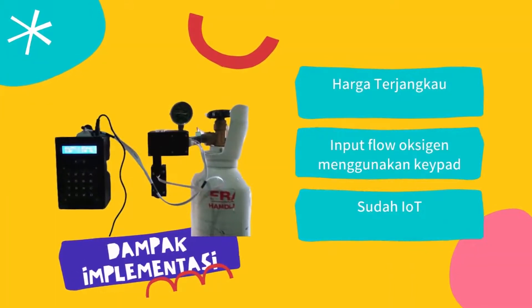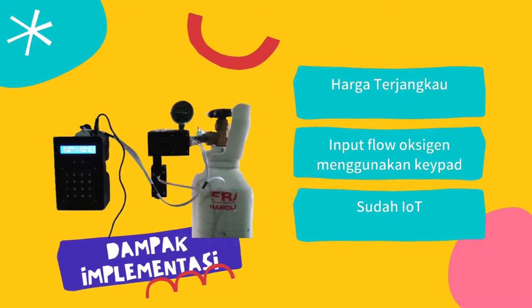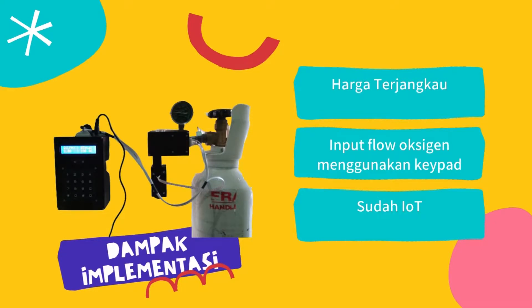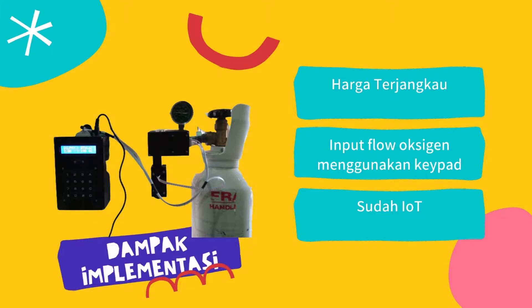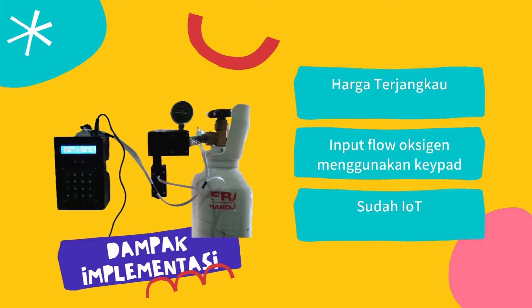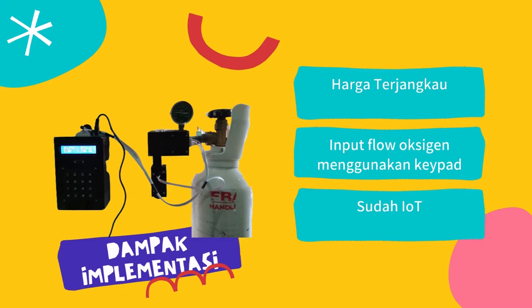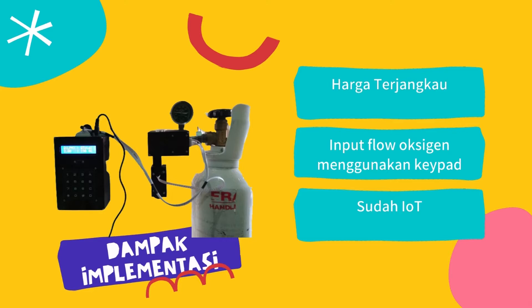Dampak implementasi: Keunggulan-keunggulan dari alat kami yaitu, pertama dari segi harga cukup terjangkau dibanding alat serupa yang ada di pasaran saat ini, yang fungsinya hanya dapat digunakan untuk mengukur flow rate saja. Kedua, menggunakan keypad untuk mengatur nilai output flow rate oksigen sehingga akan lebih memudahkan. Terakhir, sudah terintegrasi dengan sistem IoT sehingga dapat dilakukan monitoring secara real time dari lokasi yang berbeda, dan data hasil pembacaan alat juga akan tersimpan secara otomatis pada database. Terima kasih sudah menonton.